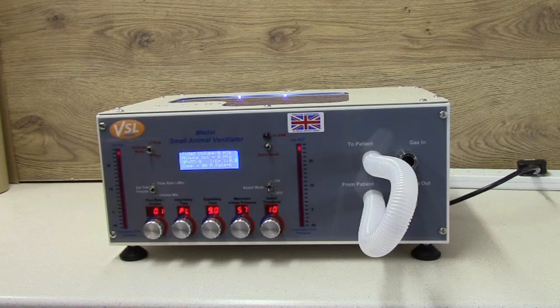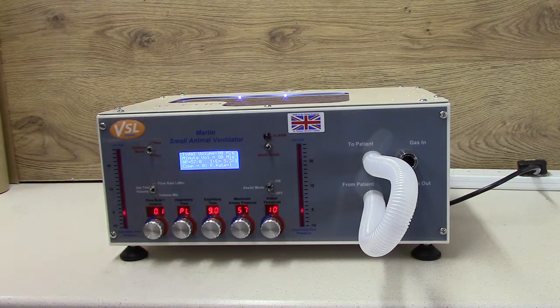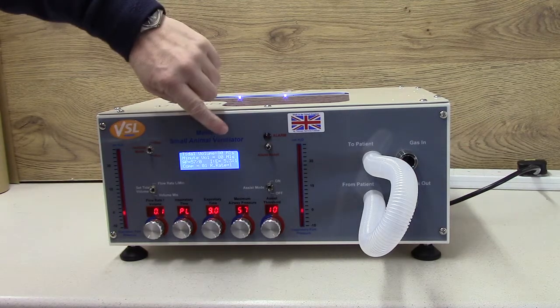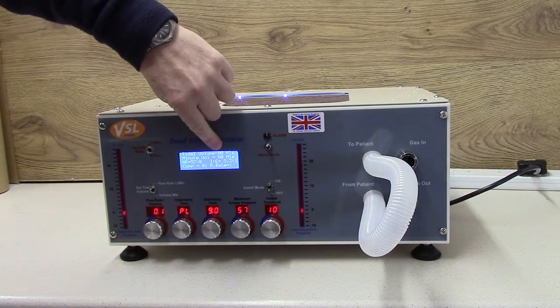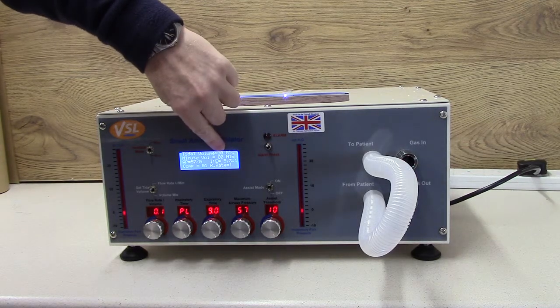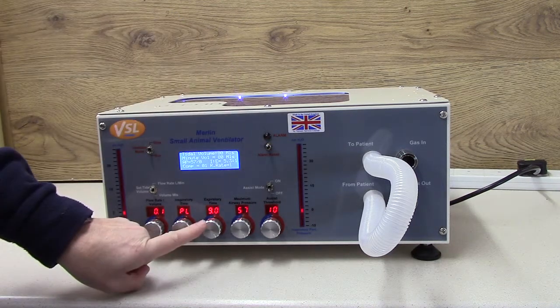Keep an eye on the LEDs at the top of the inspiratory and expiratory bar graph and watch how they drop when MERLIN reaches pressure. The tidal volume that has been displaced will be shown at the top of the screen.